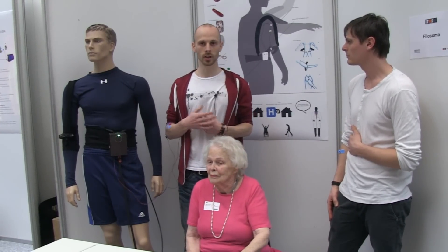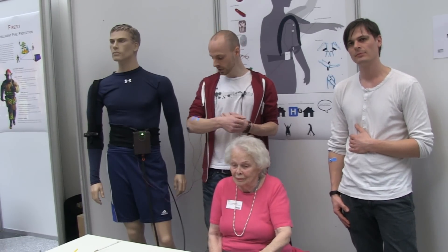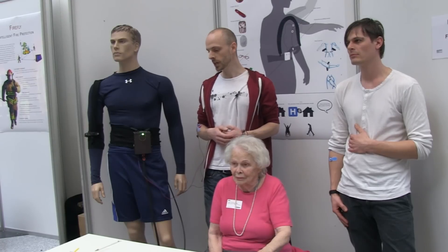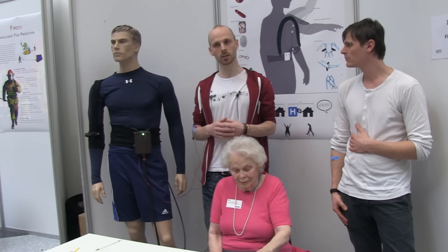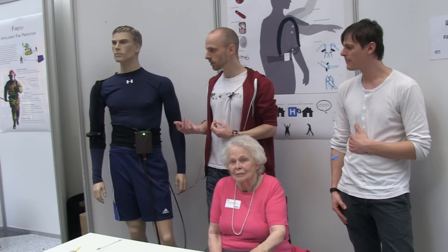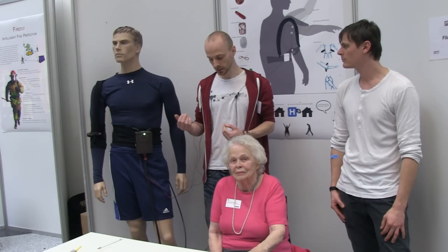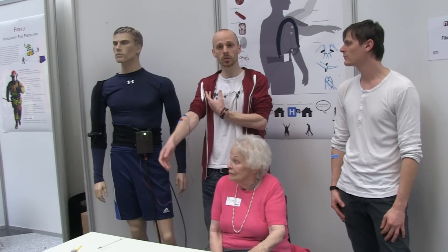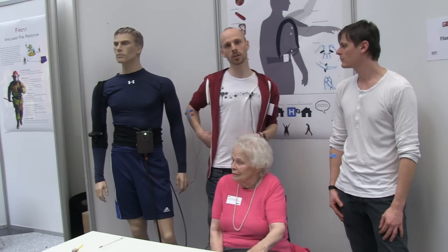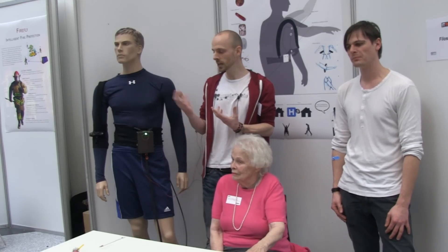We're collaborating with physiotherapists, and they have a lot of people researching on EMG electrodes and how to work it out. Basically, we came up with this solution based on a tube that stretches out when it gets inflated, and we thought we can use this to lift an arm. In this case with Kathleen, we're only doing forward motion. By attaching the muscle like this around on the back, when the muscle wants to stretch out when it inflates, we can actually lift the arm.